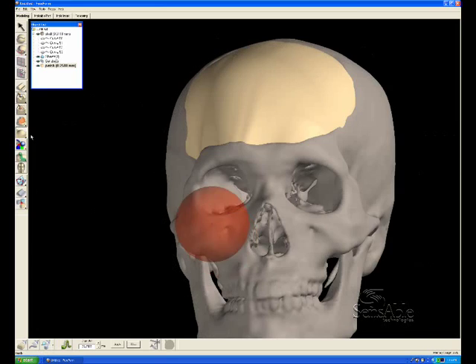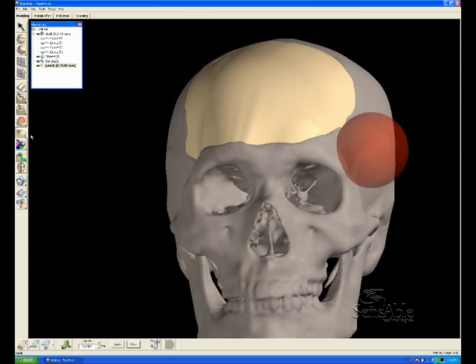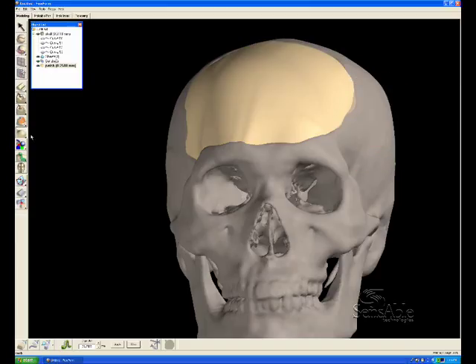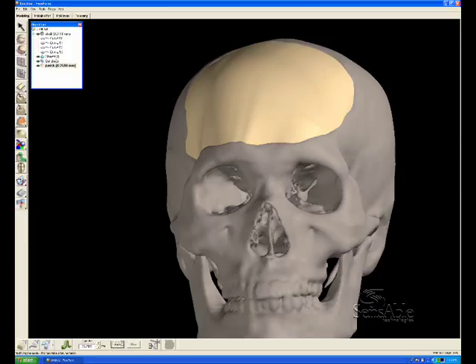Now you see I'm just going around the surface of the skull and orienting the view so that it's level with my viewport. And that allows me to see if there's any bumps or valleys where the patch meets the surrounding defect.